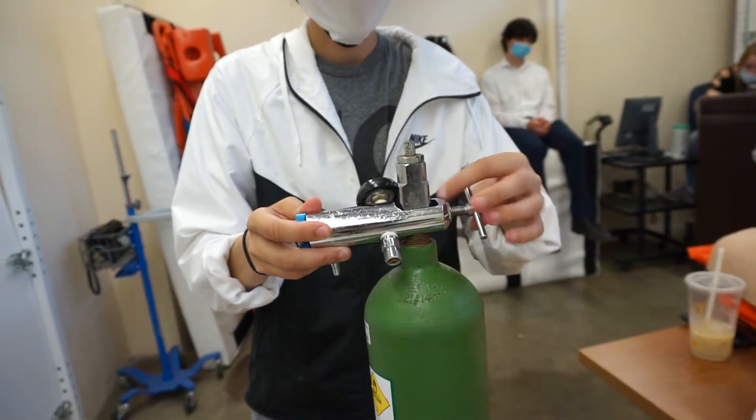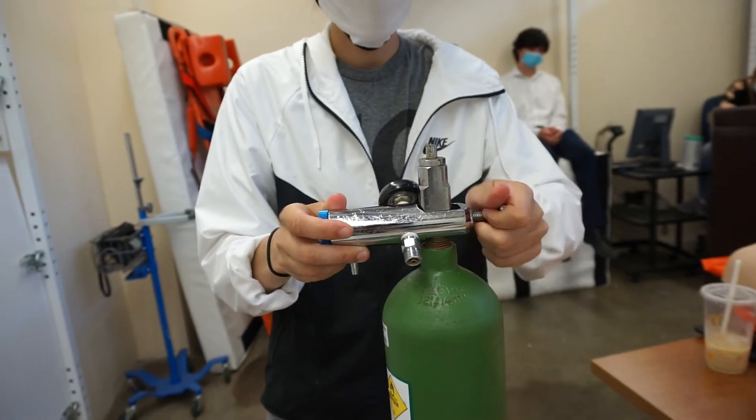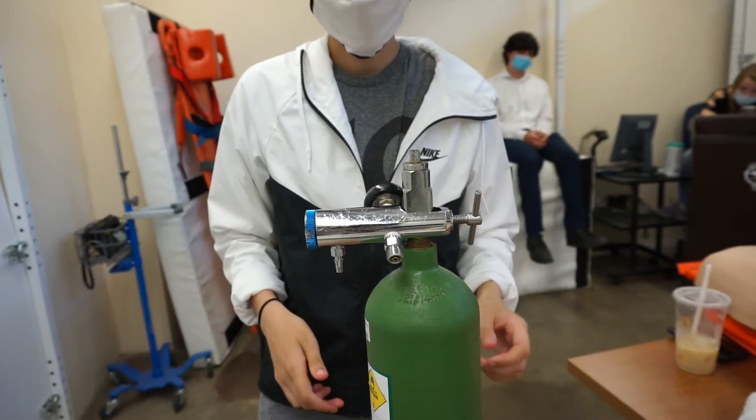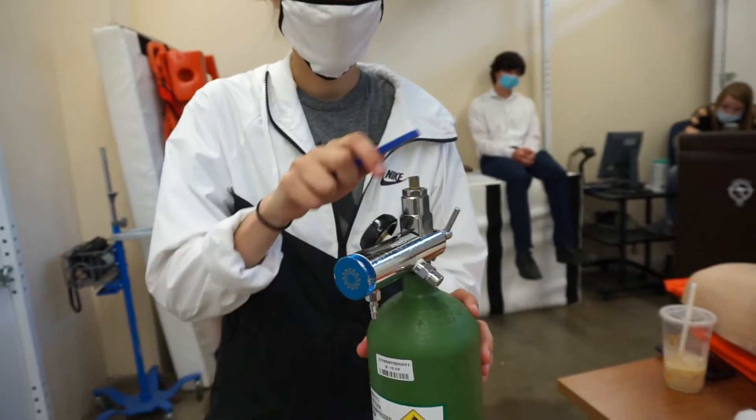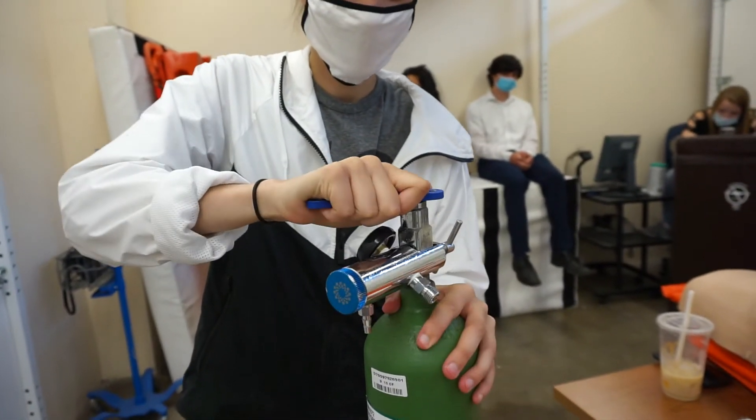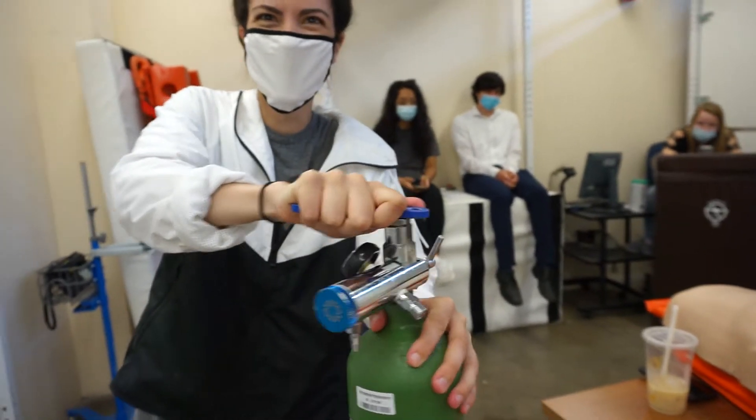So go ahead and tighten it thinking that you're right. So she's tightening, she's tightening, she thinks she's in. Go ahead and take the O2 key, and then she's going to crack the tank. This is what you'll hear when it's not on. Going to close it.